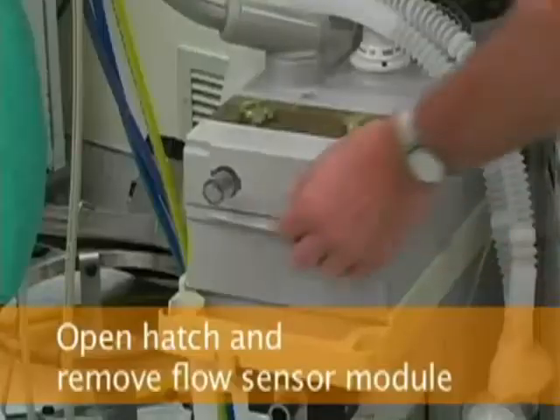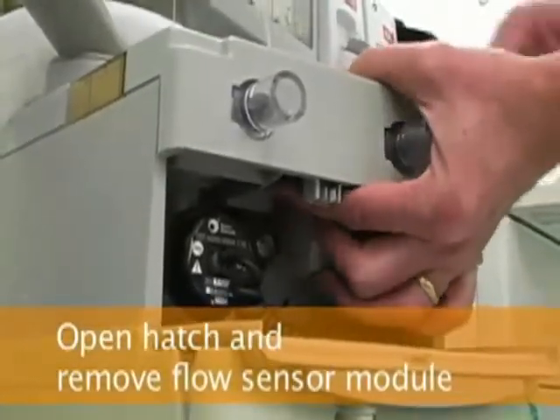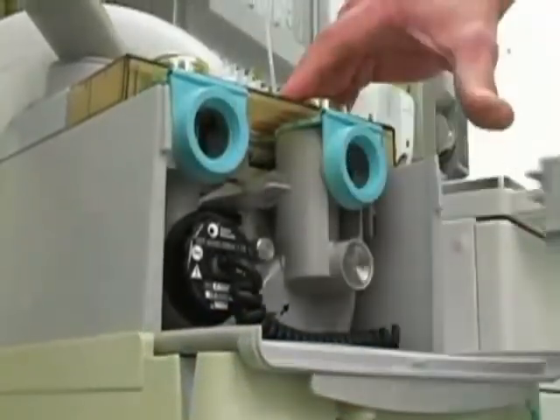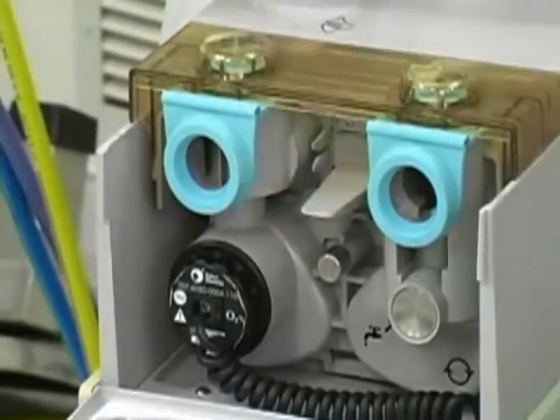To calibrate the flow sensors, open the hatch under the flow sensor module. Remove it by pushing up on the tab under the module while pulling it straight out. The tab that releases the module is shown here.